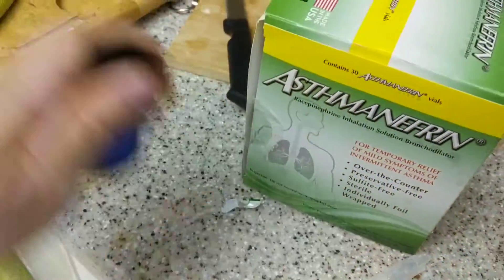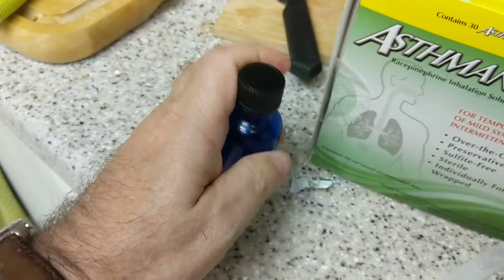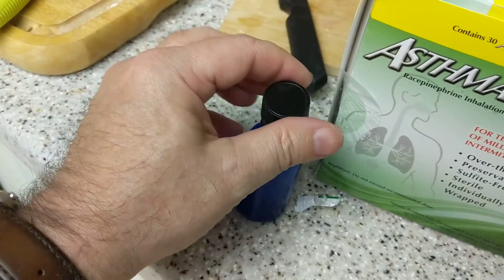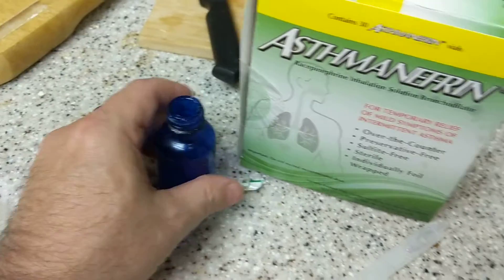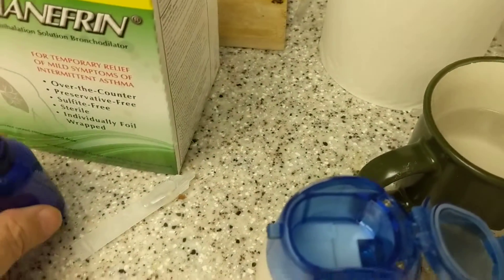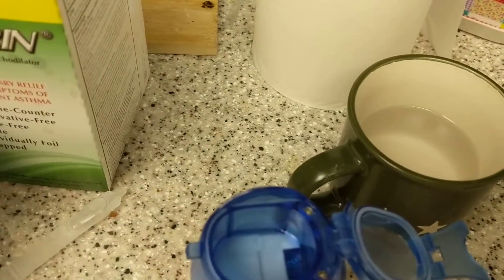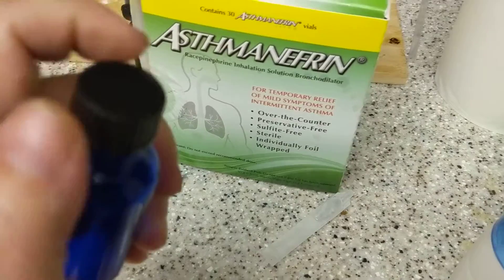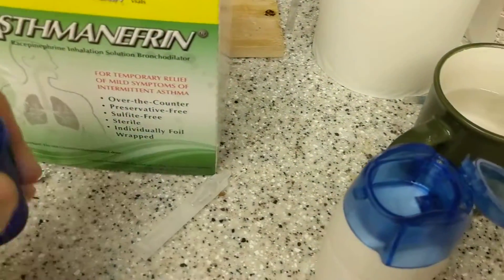This is a 1% solution of Baytril (enrofloxacin) in water that was boiled. I'll add about 1 ml of that to the reservoir as well, giving us our full dose.